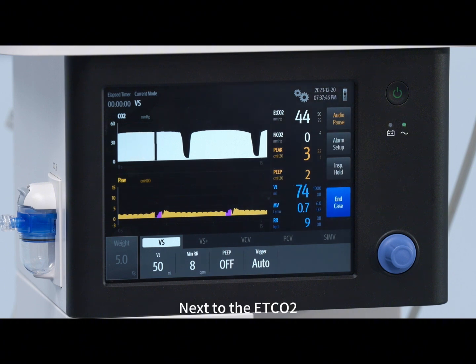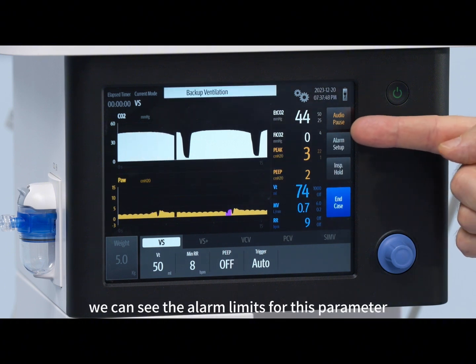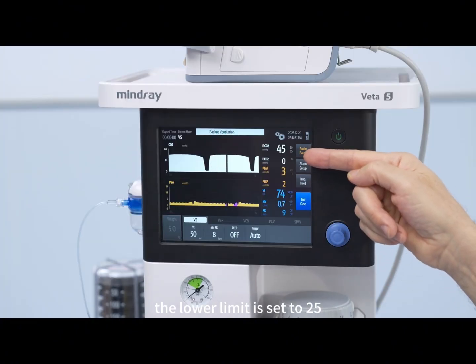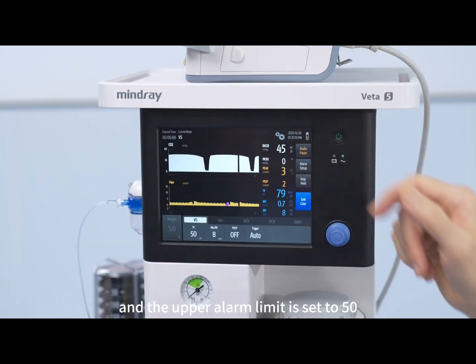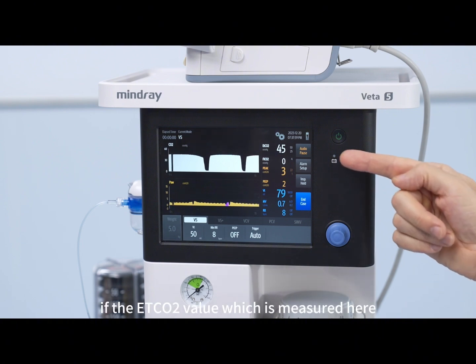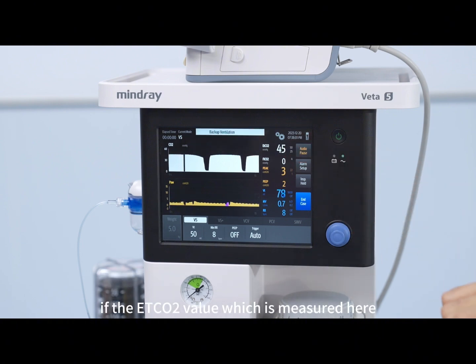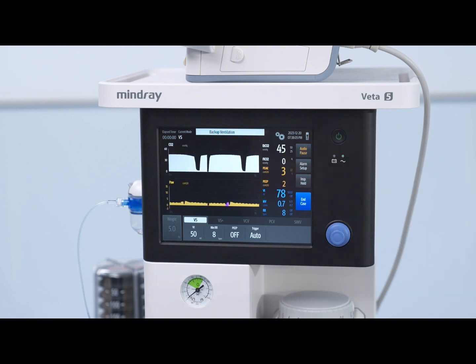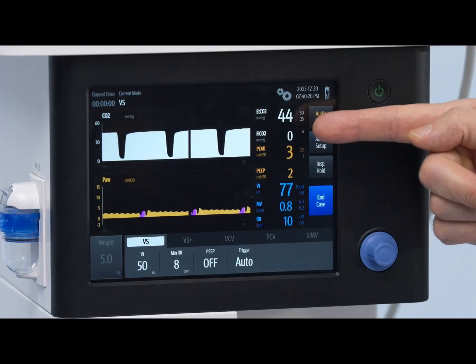Next to the ETCO2, we can see the alarm limits for this parameter. By default, the lower limit is set to 25 and the upper alarm limit is set to 50. If the end tidal CO2 value, which is measured here, would become outside of this range, an alarm would sound.